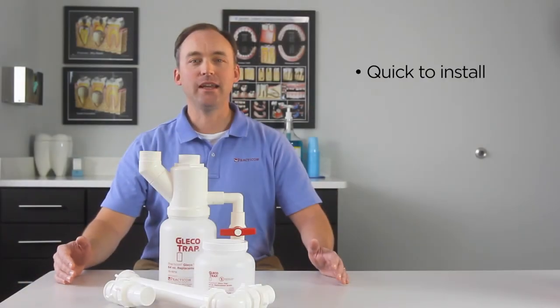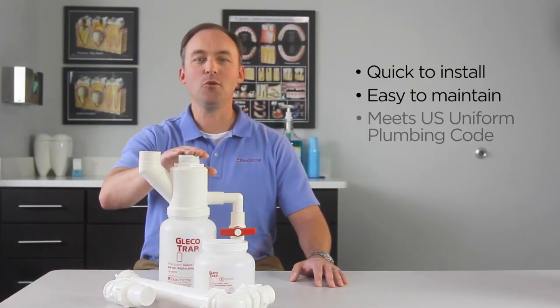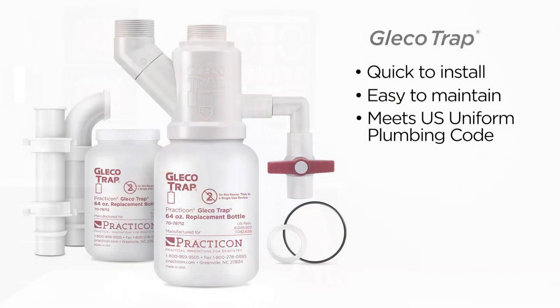Quick to install, easy to maintain, and the only plaster trap to meet the U.S. Uniform Plumbing Code. That's the GlecoTrap, another practical innovation from Practicon.